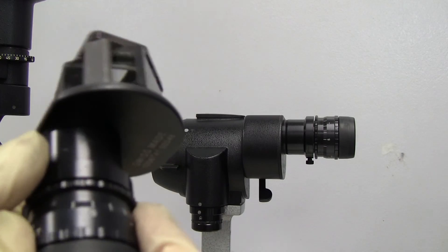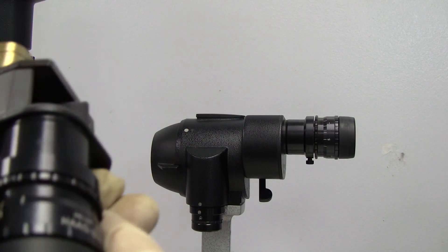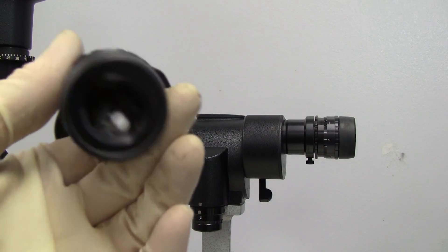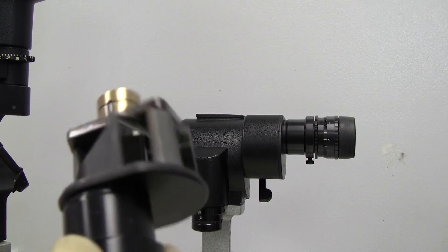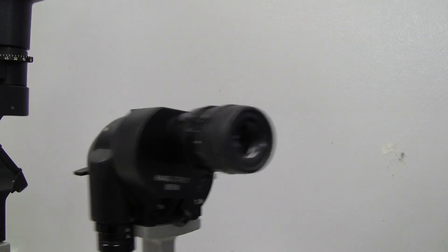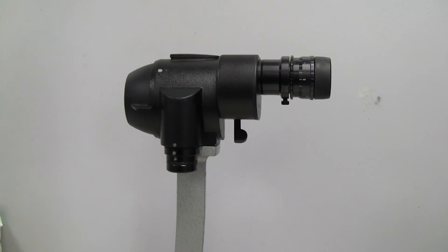But Haag-Streit says to send it in. And it takes a while. But when they send it back, they do a very nice job. And they will align your arm and head up.